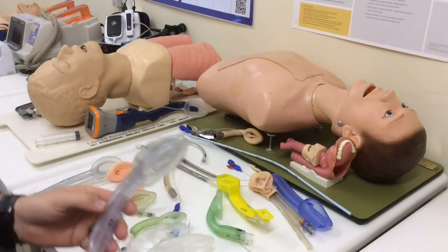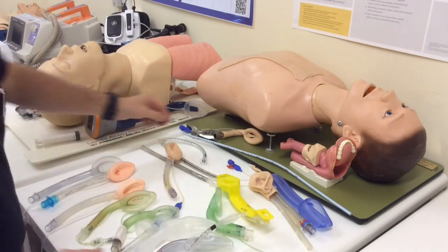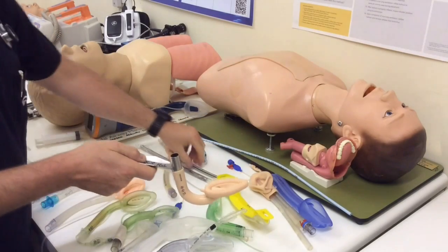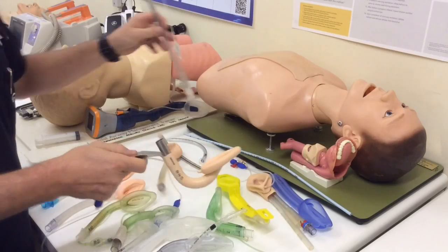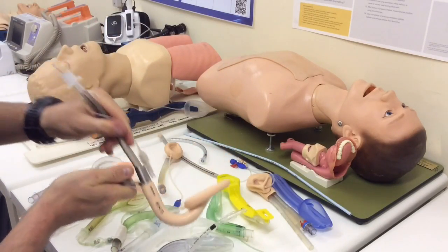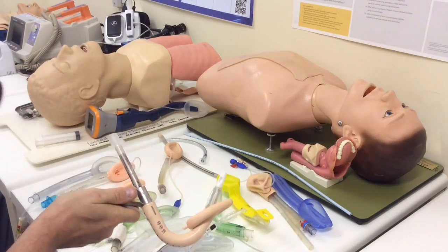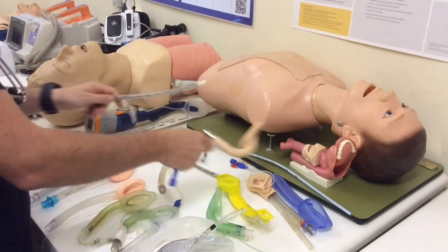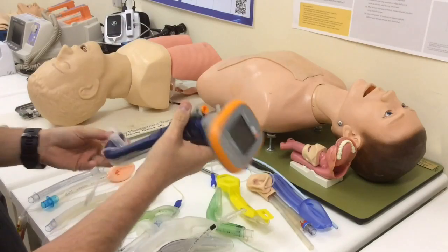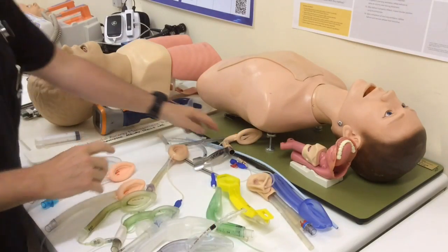We've also got LMAs which are designed specifically to allow blind intubation. A classic example is the Fastrach intubating LMA — you'll see it's got a rigid shape, a specifically designed endotracheal tube, and when the tube comes out the end it comes out at a nice acute angle, designed to go through the vocal cords. We could even use a video intubating LMA such as the Total Track that I've got here. I'm going to do subsequent videos on those two devices, so watch this space.